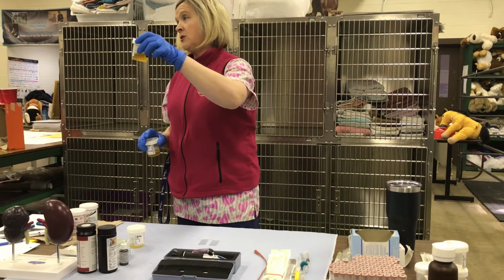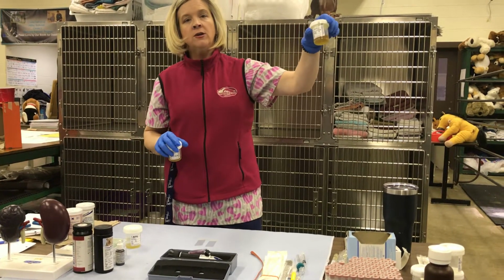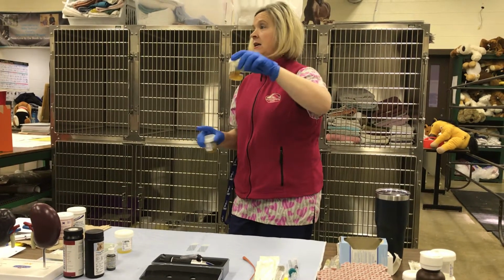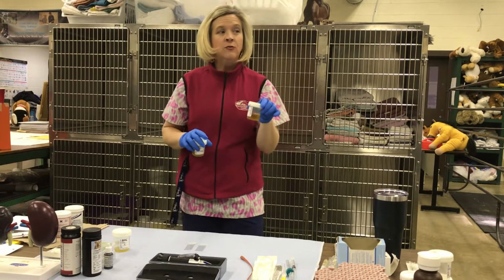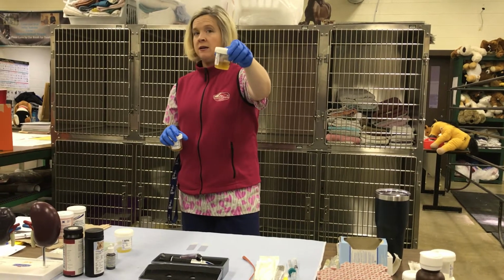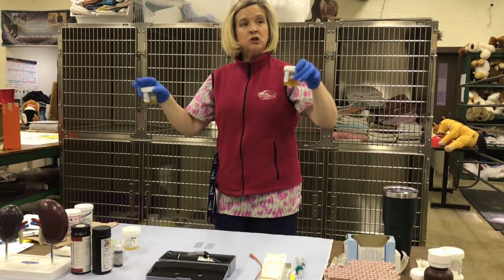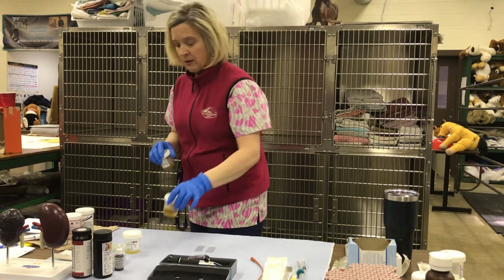So when we get a urine sample, it's important to put the date and time on it, because when we run a urinalysis, we want to make sure that we have a sample that's within an hour's time, okay? Any urine sample that we collect, say a client brings it in, and if we can't run that urine sample right away, it needs to be refrigerated. Any type of bodily fluid or sample that sits out at regular room temperature, bacteria is going to start to multiply in it.